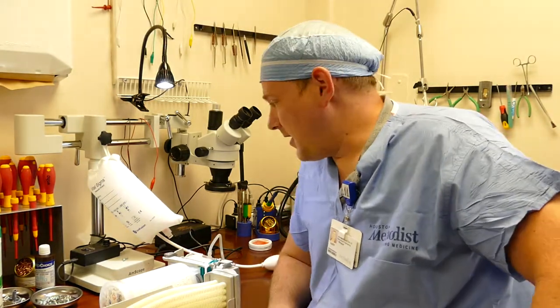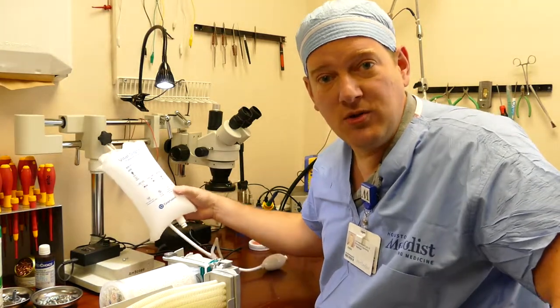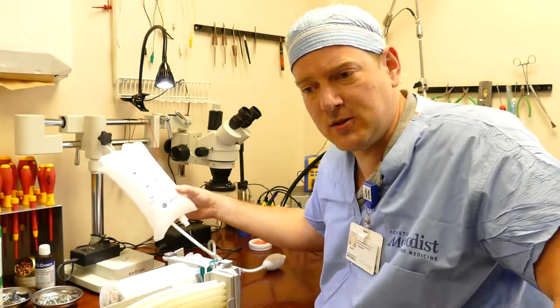So there you go guys, this simple pressure checker jig. You can use this for various things — you can even use it on things like vaporizers. It's a portable and easily stowable jig that you can use to pressurize various medical devices. Thanks guys, hope you enjoyed it.